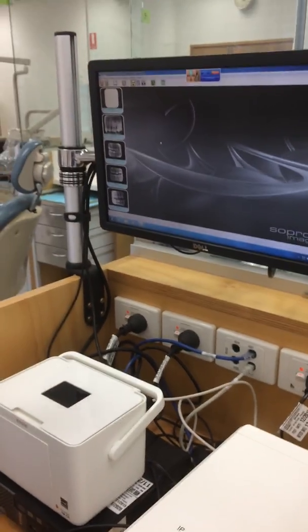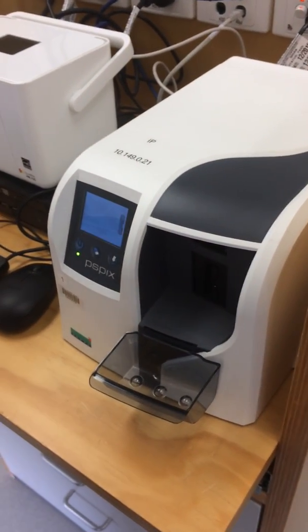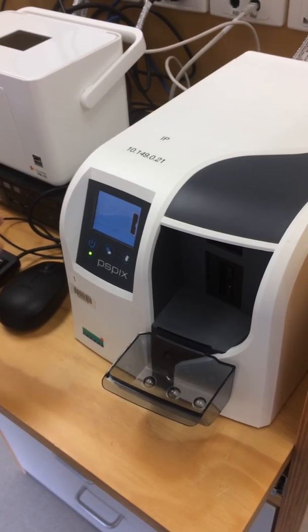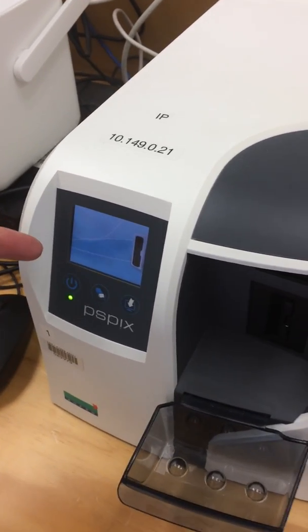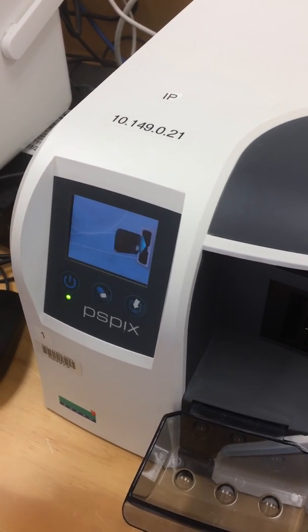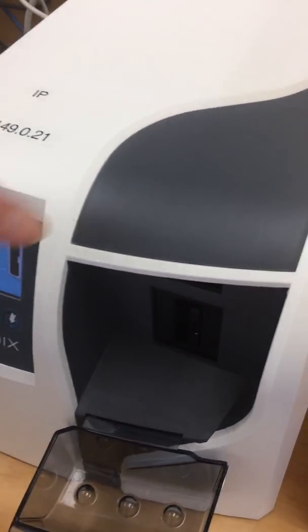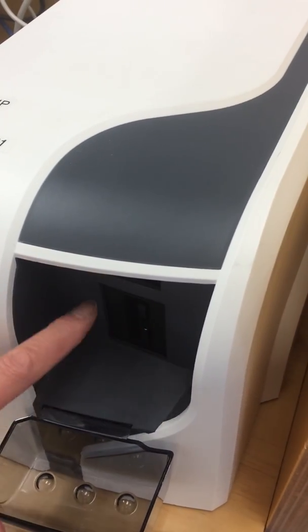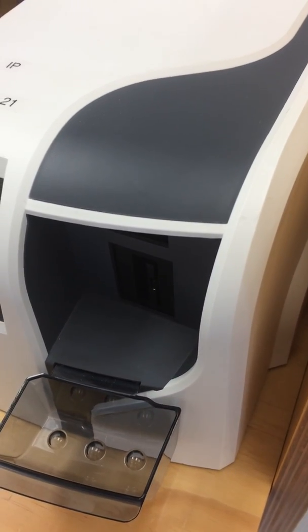Any radiographs taken from now will be uploaded into your file. When you come to the processor, the first thing you need to make sure is that the animated indicator here shows that it's ready to be processed — that's the actual mechanism that's going to take the radiograph.